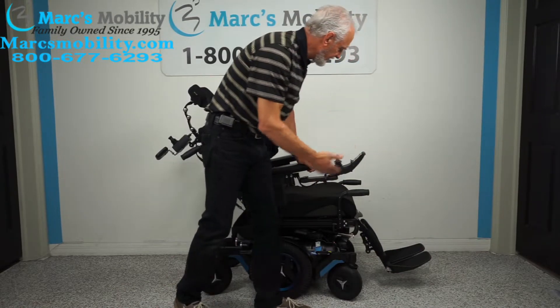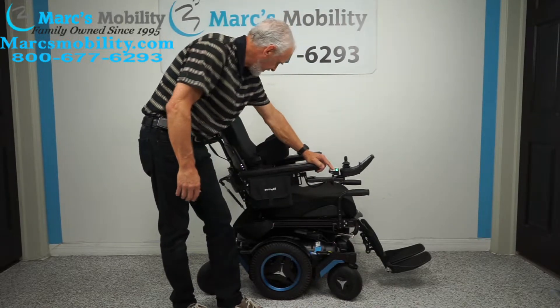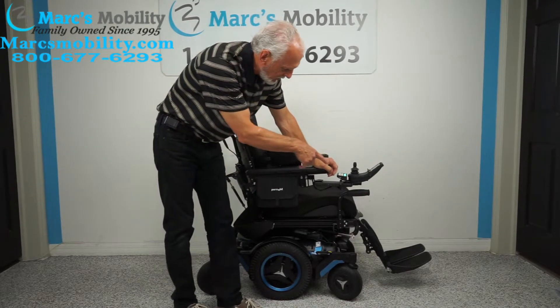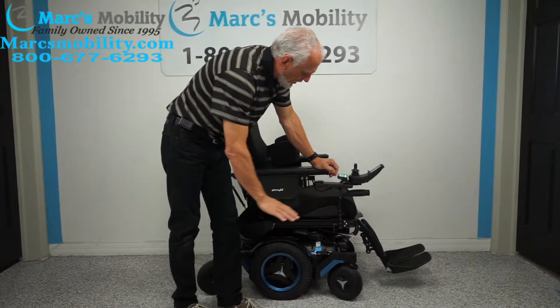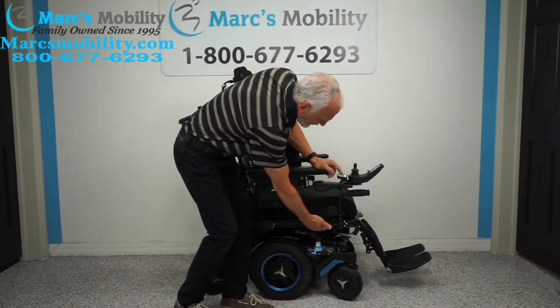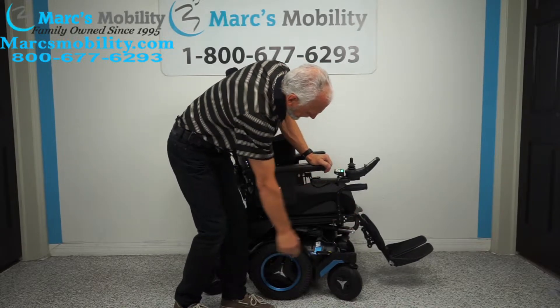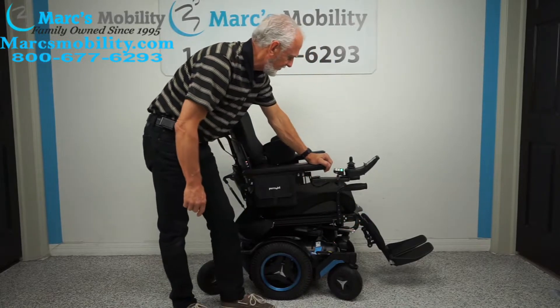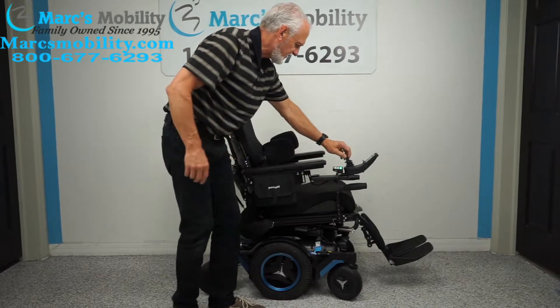When you're outside, leave the legs out a little bit to give more clearance. If you need more clearance and have long legs and we have to put the foot plates lower, you can always tilt the seat back a little bit. Just tilt it one or two inches and it gives you four or five extra inches of clearance over there.